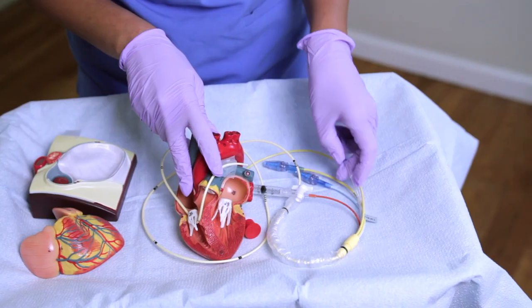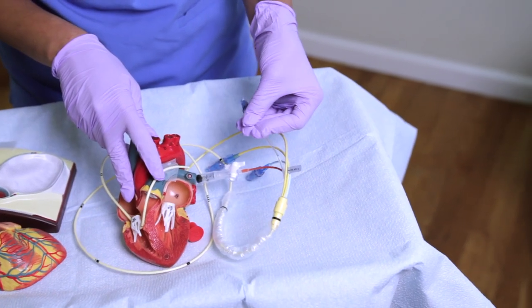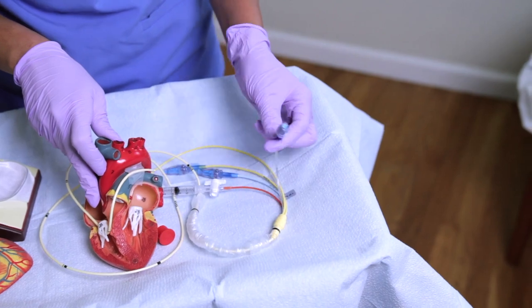In today's video, we will be going over a quick review of your Swan-Ganz catheter, also known as your pulmonary artery catheter, your PA cath, or your PAC. In today's video, I'm going to refer to it as a PA cath for the duration of the video.